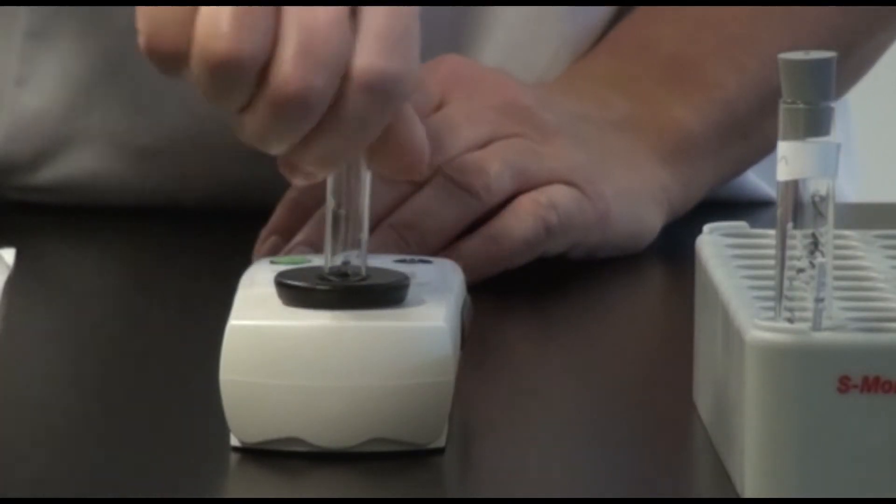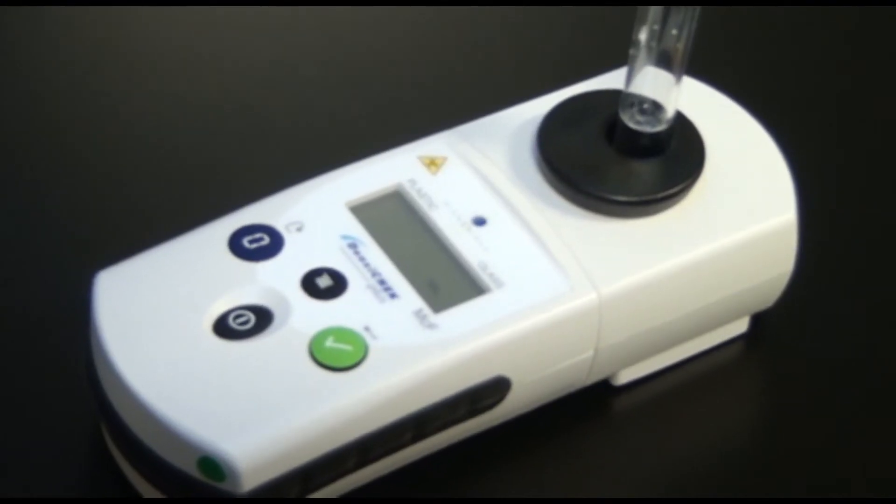Place the suspension in the density check and verify that the McFarland is at 0.5.